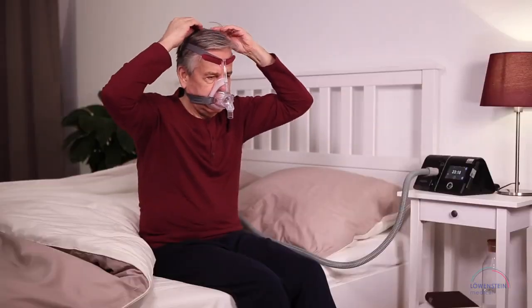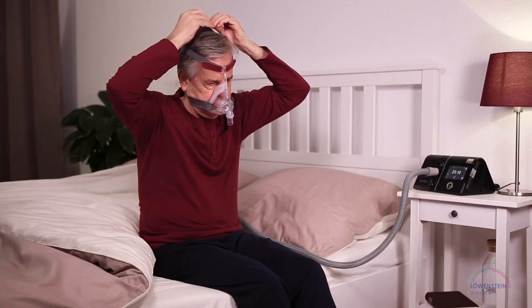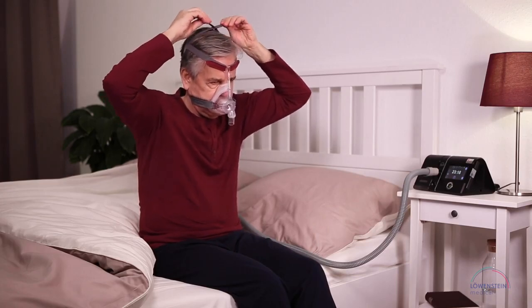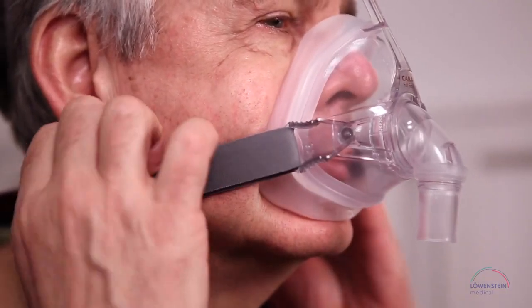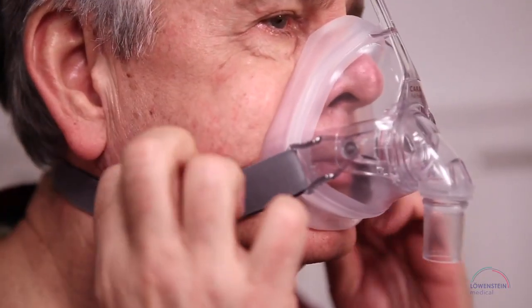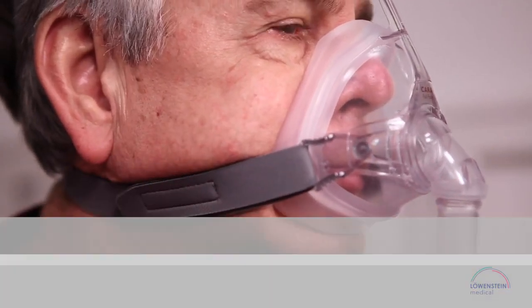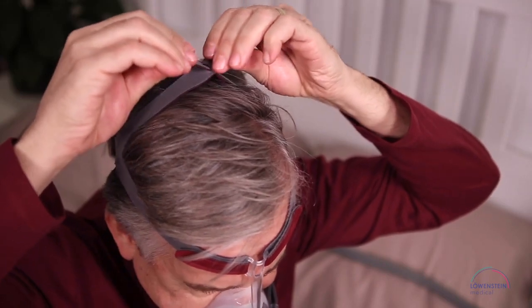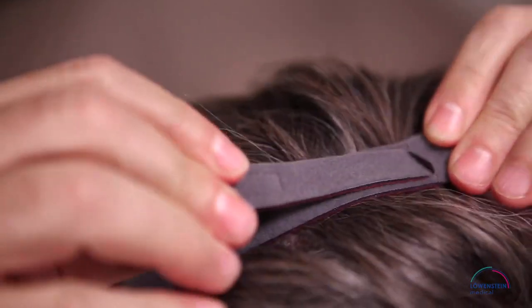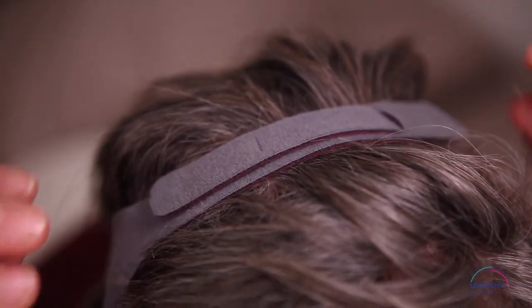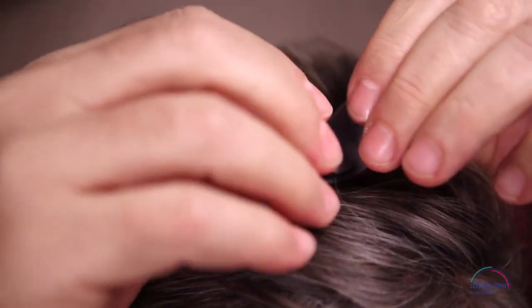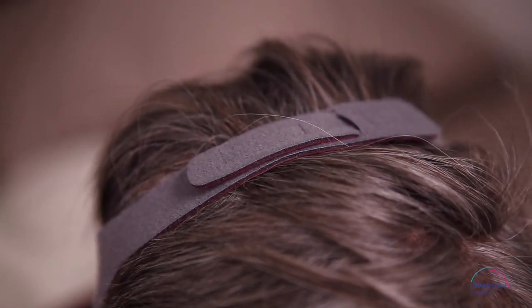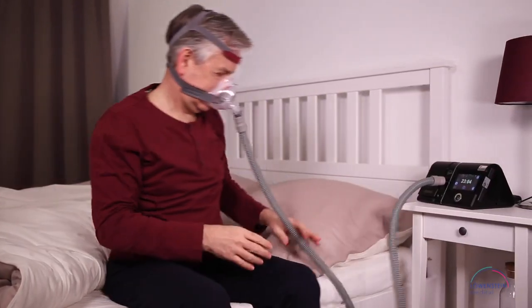Finally, you can adjust the cross strap on the head in such a way that the lower straps do not sit too close to the earlobes. To do so, loosen both hook and loop tabs. For a small head, pull the tabs apart and for a large head, push them together. These options let you adjust the size of the headgear ideally for your head circumference.